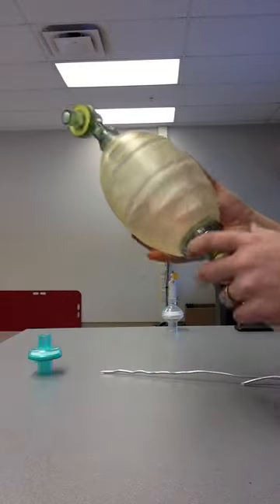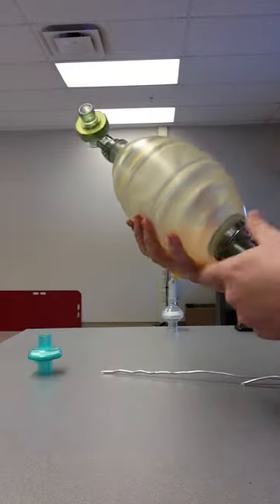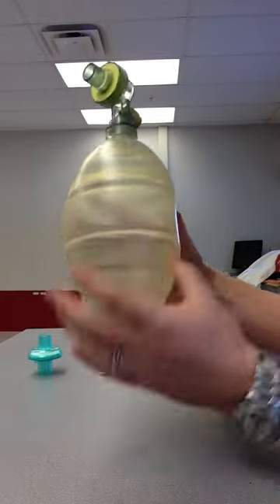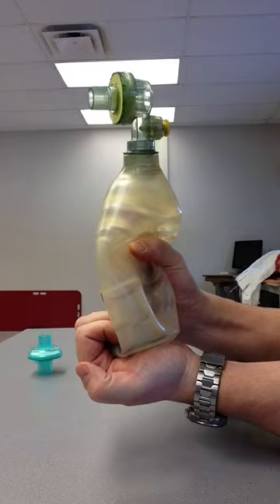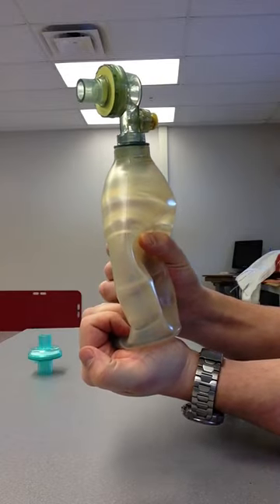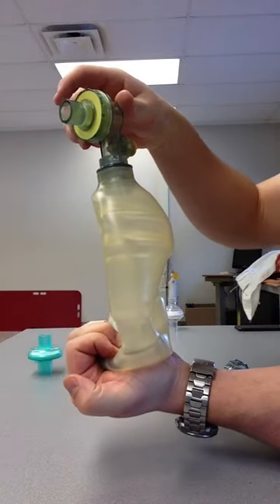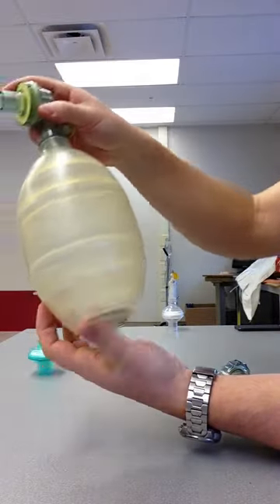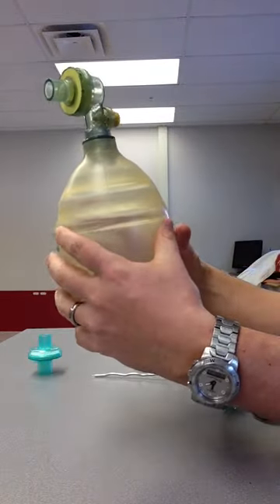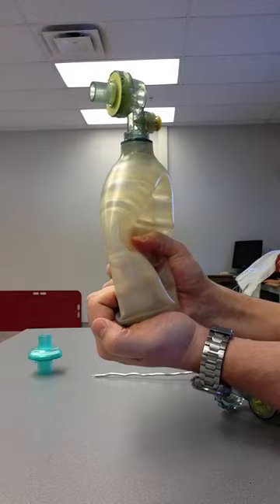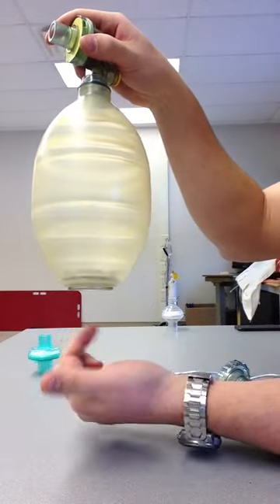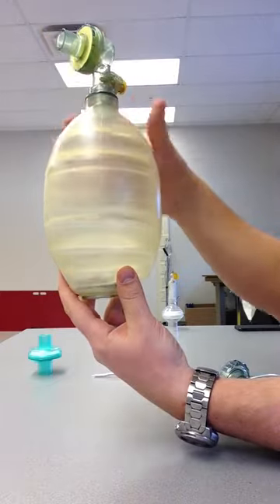Final check I usually do is I take off my reservoir and I check that patient intake valve. I want to squeeze my bag, I want to occlude that patient intake valve, and I want to see that that bag stays collapsed. If that bag didn't stay collapsed, then I know I've got a problem with that valve. Because that bag should only re-expand when that valve unseats, and it can only unseat when I take that occlusion away.